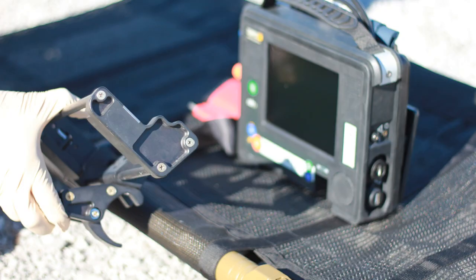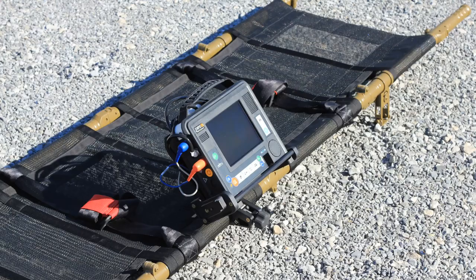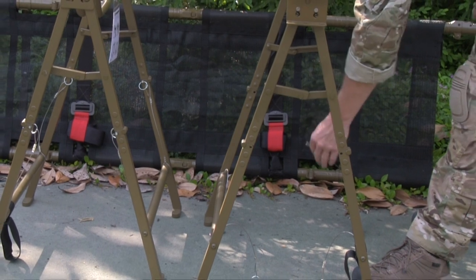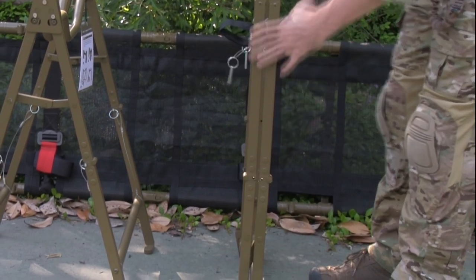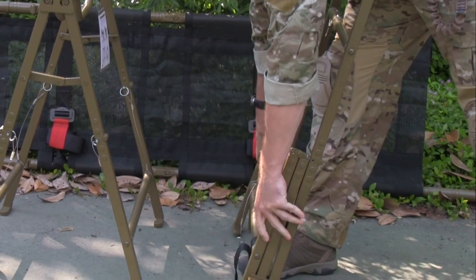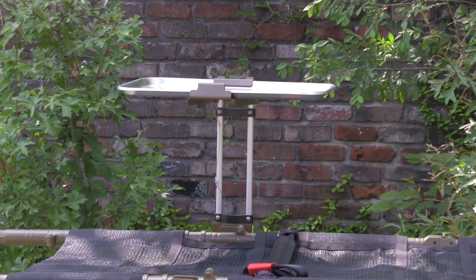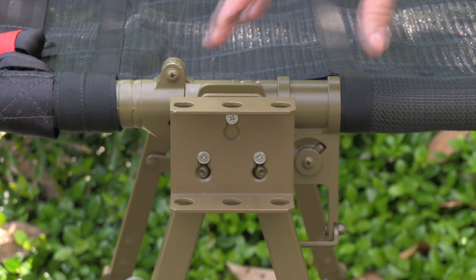A variety of equipment-specific mounts are available from Ferno Military Systems, allowing for securing of medical devices to the APE litter for transport with the patient. Also available from Ferno Military Systems are innovative folding litter stands that support the APE and all other NATO standardized litter systems. The stands are 33 inches high when deployed and fold to a compact 17 inches by 5.5 inches, rated to hold 500 pounds. Litter stand accessories include a removable mayo tray and a removable height-adjustable IV pole.